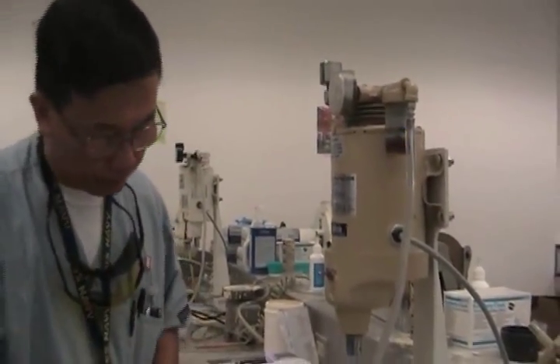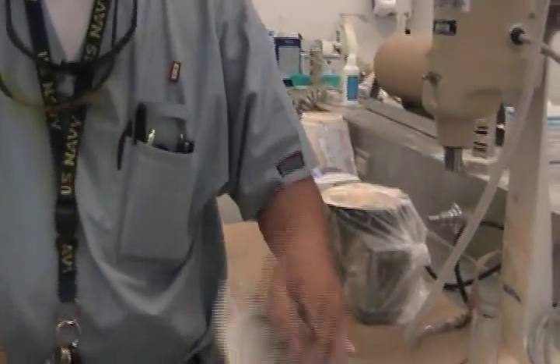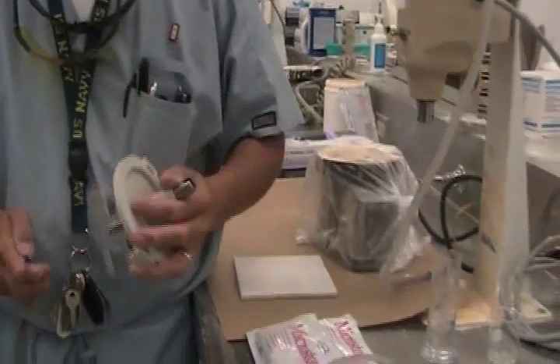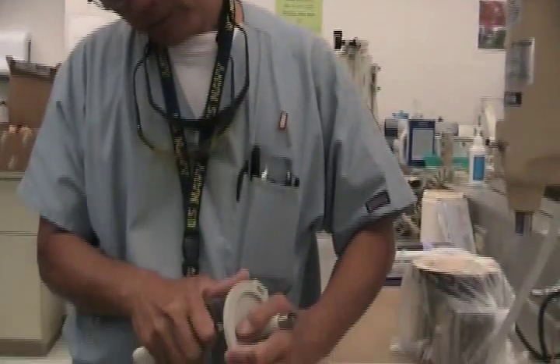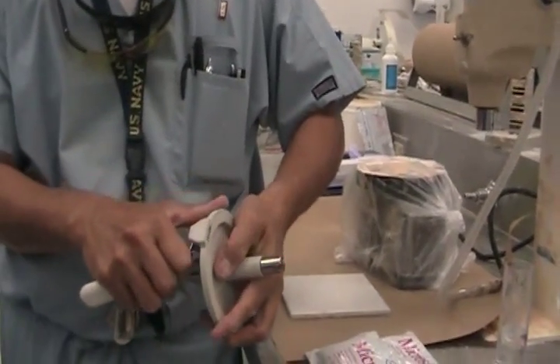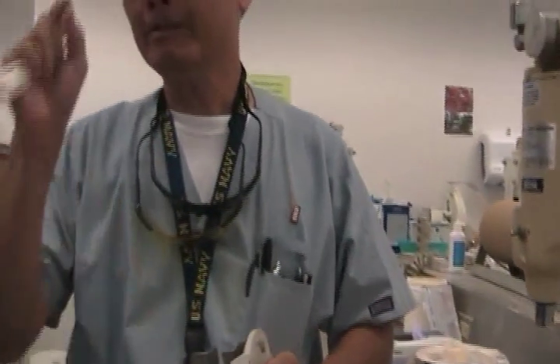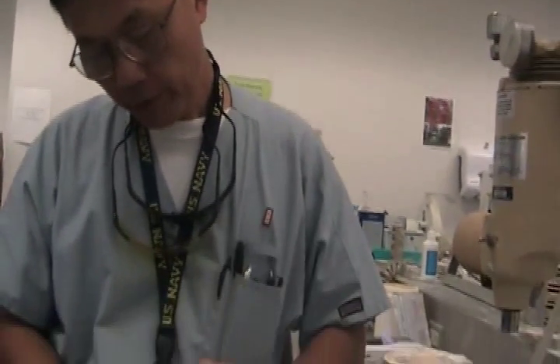I've been gloved up and very picky about all my equipment because I want it to last. I want the quality of my product not to be affected by other things. If you end up with buildup over a long time, this can get into your crown and bridge pour. And a very critical part — it could be your margin — and that just compromises your work. Then you have to call the patient back again.